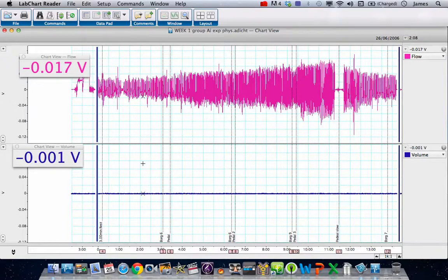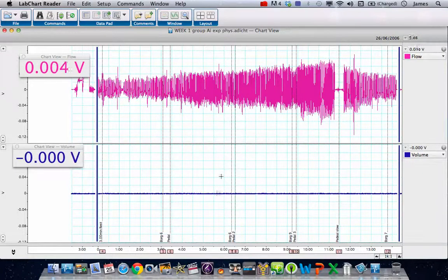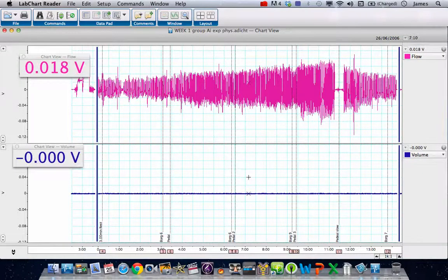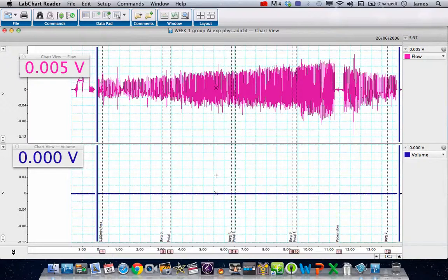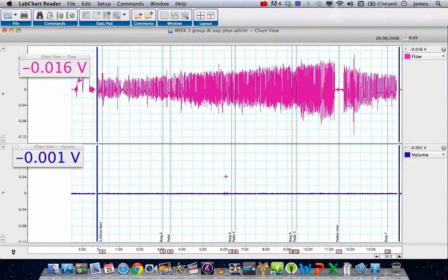Remember that the spirometry pod and the module that's installed does the calculations internally. Therefore, the voltages recorded are non-existent—they're just reading off the module which isn't installed, so it's just giving us a blank value.